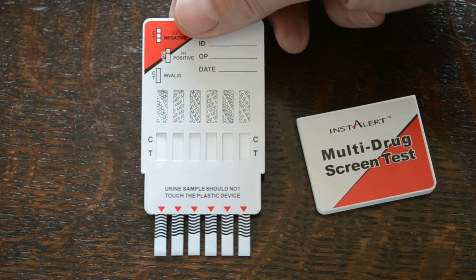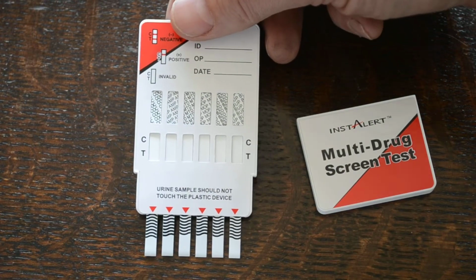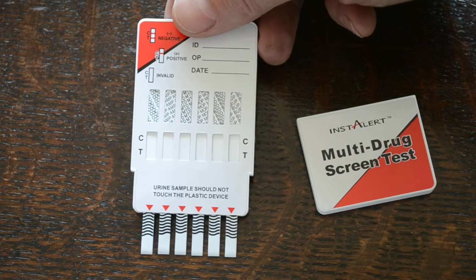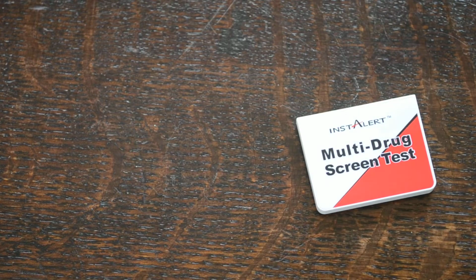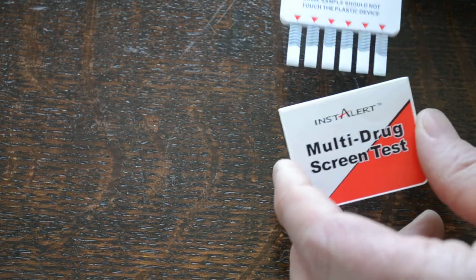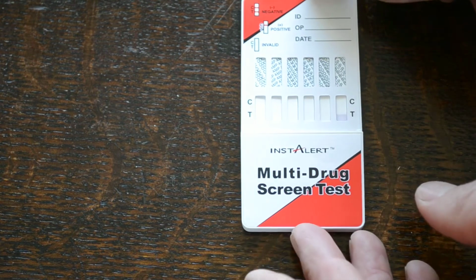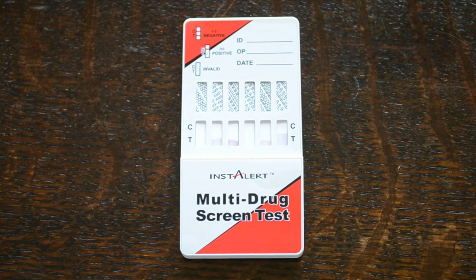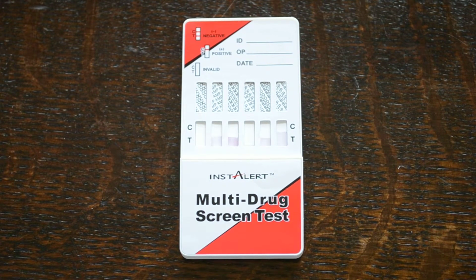Take the cover off and you have your 6 prongs with wavy lines indicating the urines to go on there, and the maximum dip line for this, or dip depth, is the bottom of the panel. That shouldn't go into the sample. So I'm going to take this off camera now. Just dip it into a sample. It needs to stay in the sample for between 5 and 10 seconds to absorb sufficient liquid to run the test. And when that's occurred, you can bring it back onto the bench and just put the prongs back into the cover, and then everything that you've exposed into the urine sample is covered and closed so it can go onto a dry surface, laid flat.